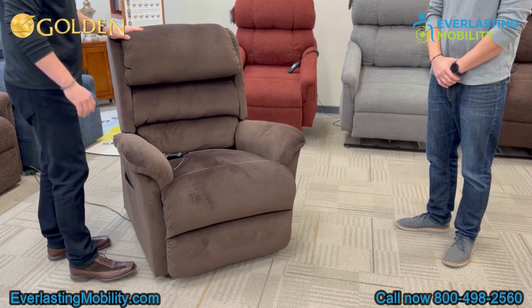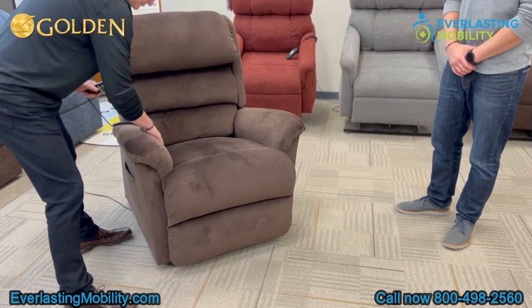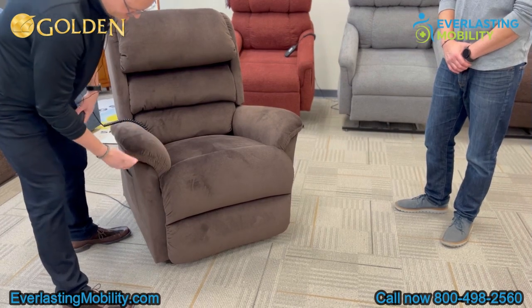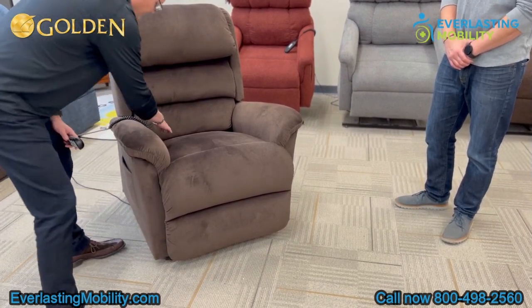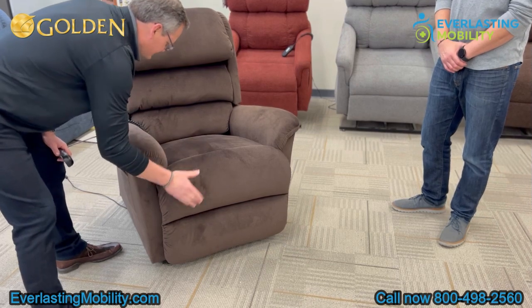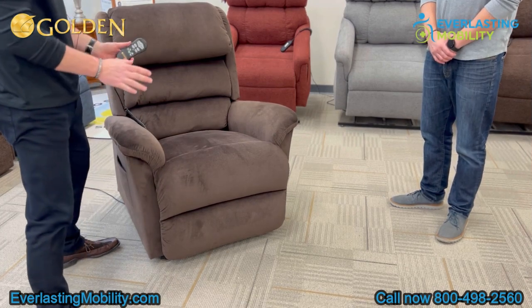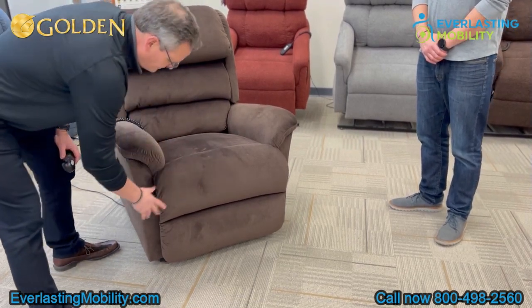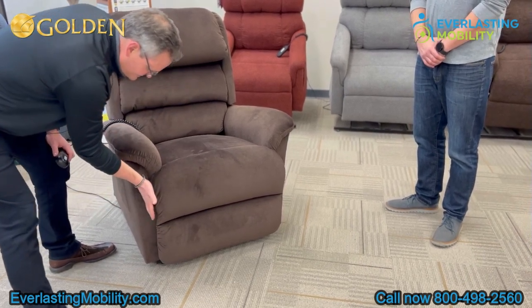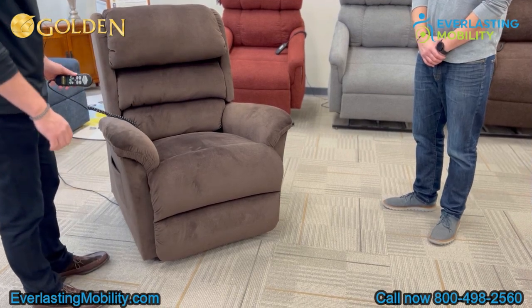This back really gives you all sorts of options to customize your comfort. It also has this rollover arm pillow, which gives you great lateral support if you're a leaner or tend to lean on one side of the chair. Not to mention it looks great — it's an updated design. It's got a full chaise lounge from the very back of the seat all the way to the bottom, with custom seams in the seat that keep the fabric from torquing and moving. People spend a lot of time in these chairs, so we don't want the fabric shifting. There's also a T-style cushion where the chaise lounge extends out in front of the arm — another design feature we're proud of.